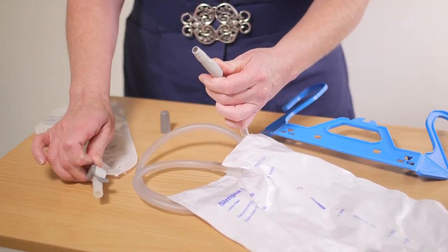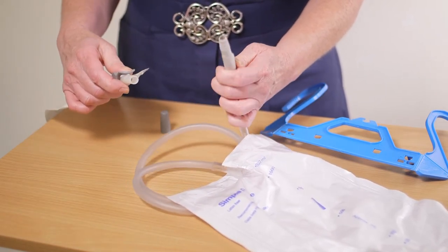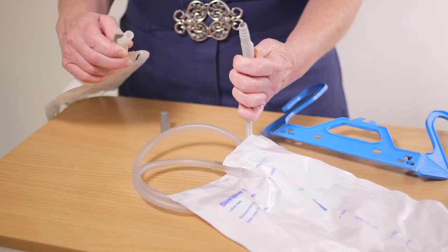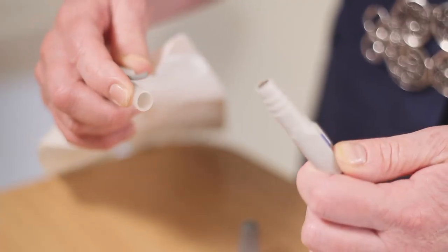Then with the tap still open, insert the end of the night bag into the small piece of tubing at the end of the leg bag.